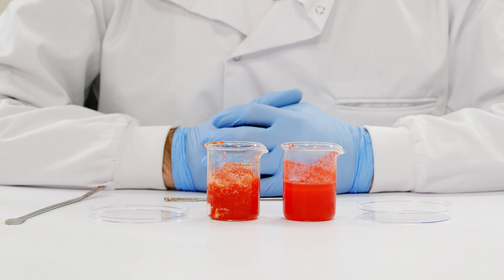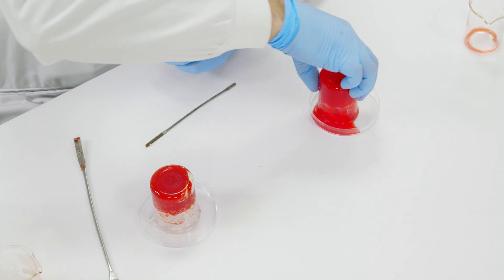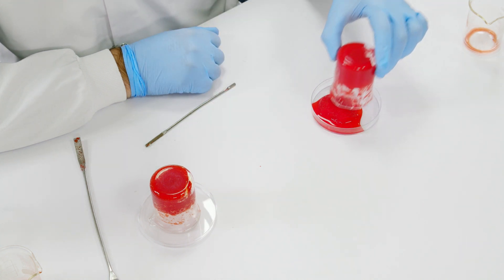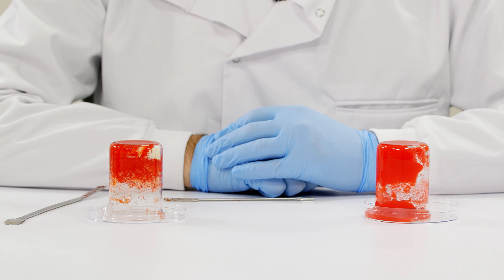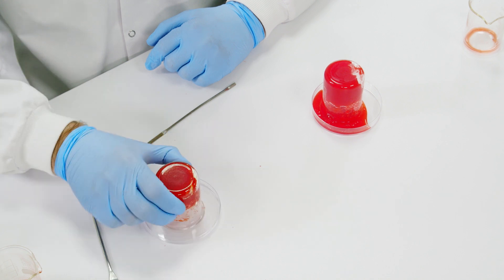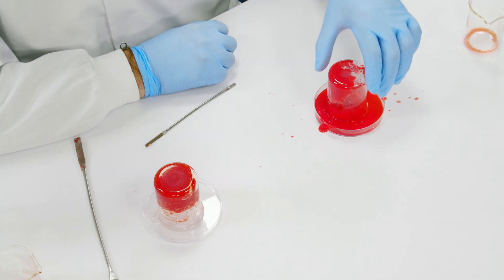I'm going to demonstrate what will happen to each sample if we tip them out onto a petri dish. When looking at the chitosan sample, the material remains a slurry and falls out of the beaker. When looking at the CELOX granules, there is no excess fluid, which indicates it has formed a firm gel — no product has come out of the beaker. Even when firmly tapping on the inverted sample, CELOX remains within the tube indicating a strong plug. The chitosan sample however flows out of the beaker, indicating a weak plug.